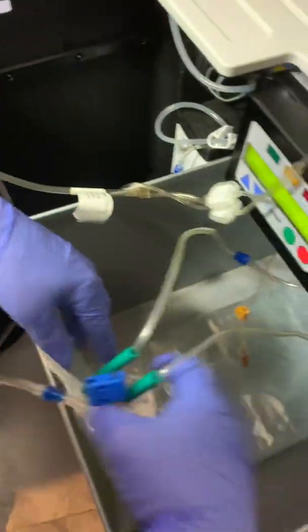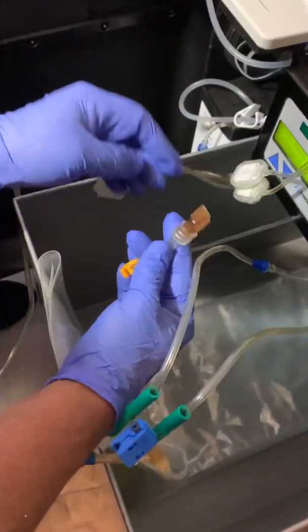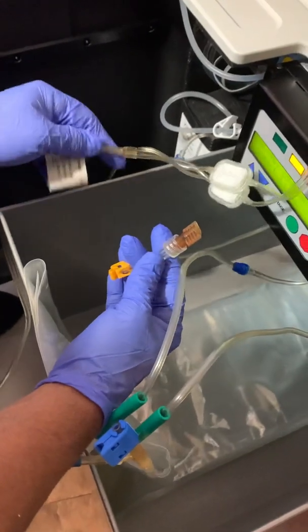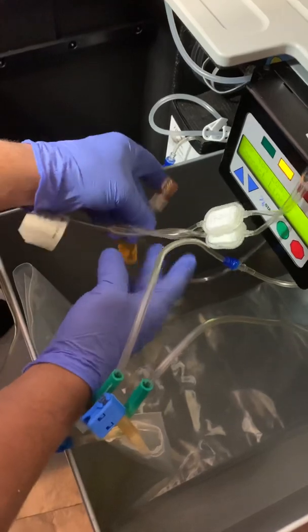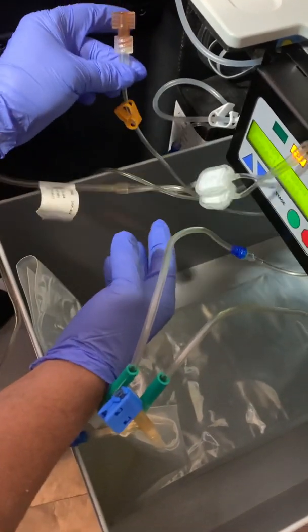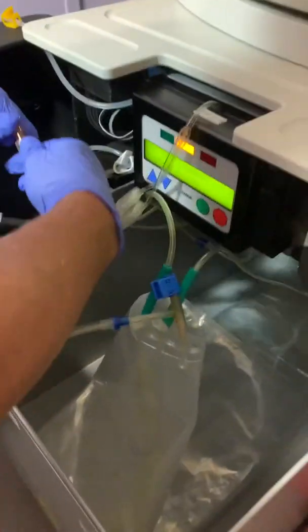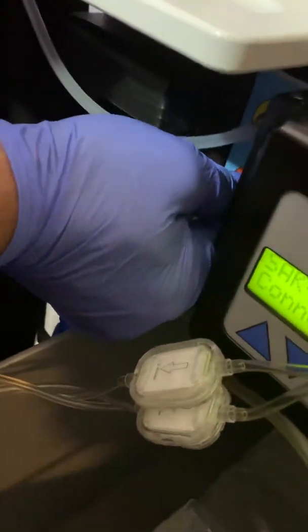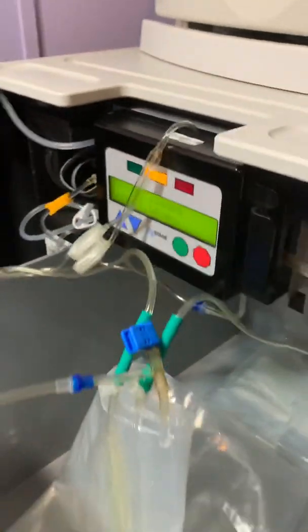It's got to be unclamped. And then this other middle line right here that comes out — you got to keep this sanitary too. It's the outside conductivity line, so I always go underneath so I'm not touching anything. Open it and it goes in the middle prong right here — you screw it on. What color prong? It's orange. It's in the middle. So that's connected.